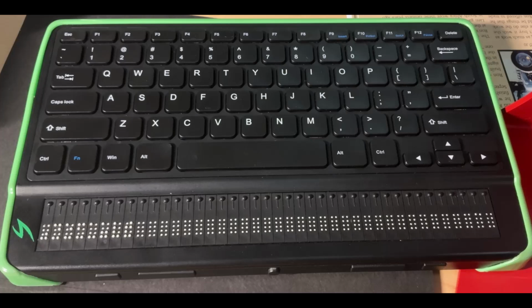Right now, the default language profile for the Mantis is set to read me everything in uncontracted Braille. I don't necessarily want that. I don't want the menus in uncontracted Braille. I don't want anything like that in uncontracted Braille. I would just really want it in English UEB. So when your Mantis arrives, that might be one of the first things you do aside from connecting it to Wi-Fi and things like that, which we'll also review in a different video. But this is how you're going to change the language profile.